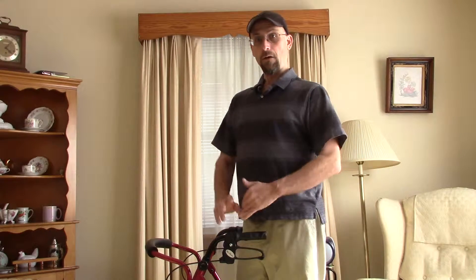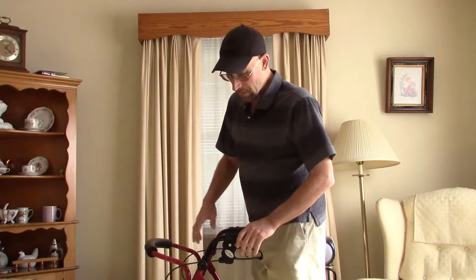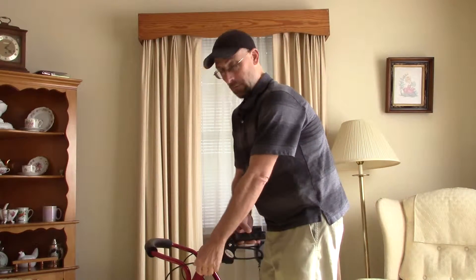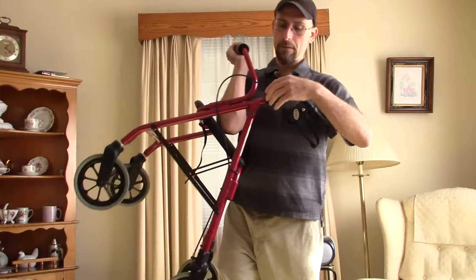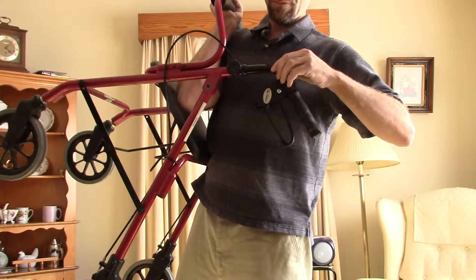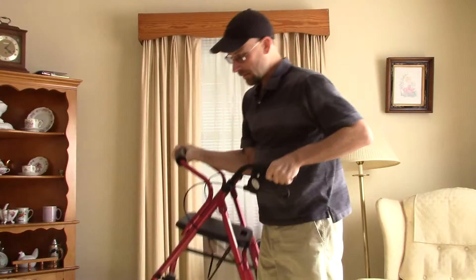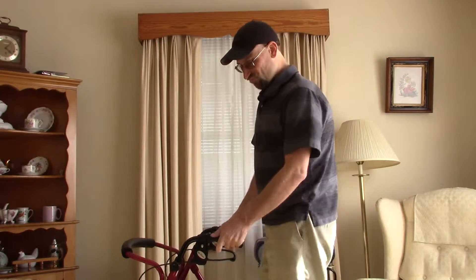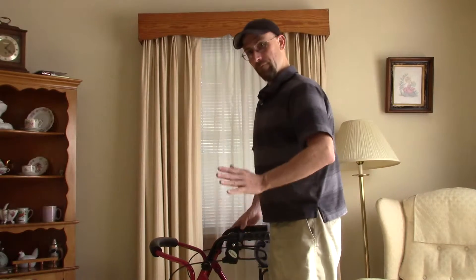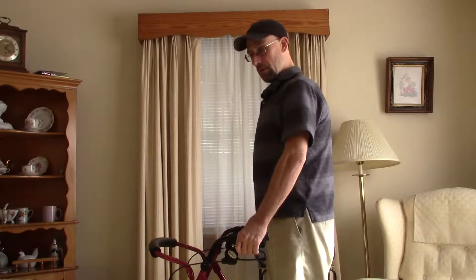If you're a shorter person, you might have to get a smaller model. But if you're taller, this model has an adjustment for the handles where you can unscrew the screw and pull up the handlebar to adjust it for height. I've set this up just as we need it.